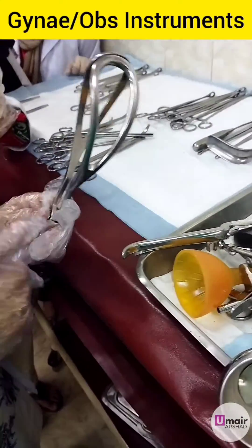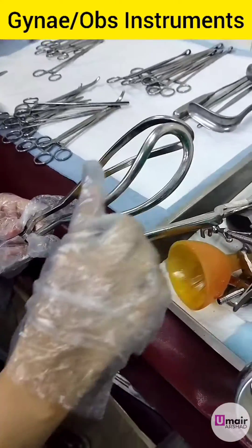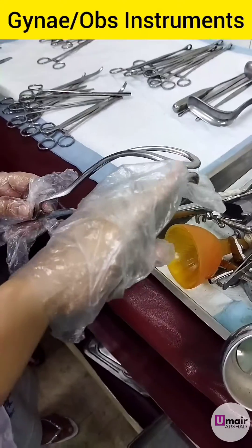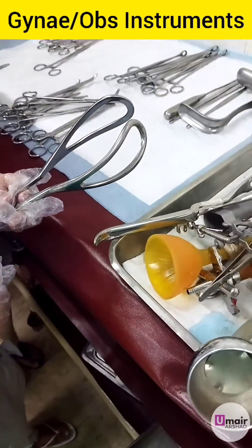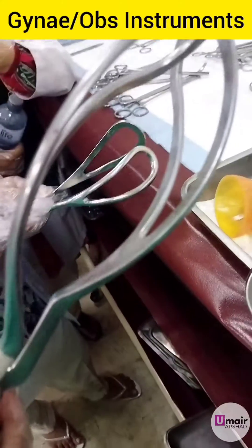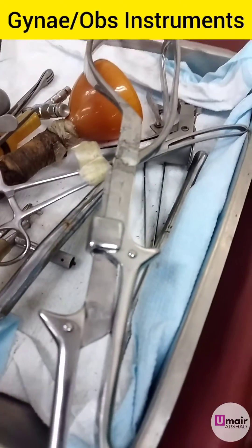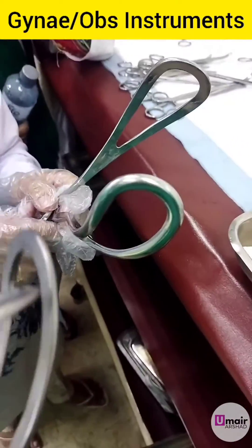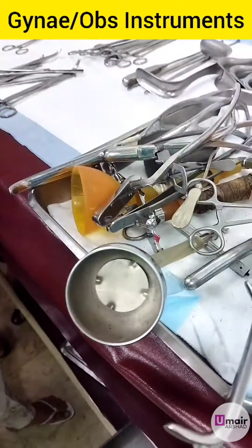This is the upper border; the inner border is the cephalic. This is the sliding lock and this is the fixed lock. What is the difference? This is the fixed lock and this is the sliding lock.